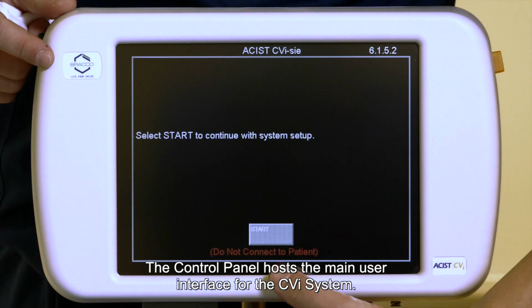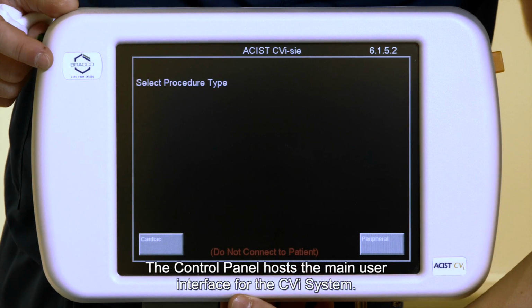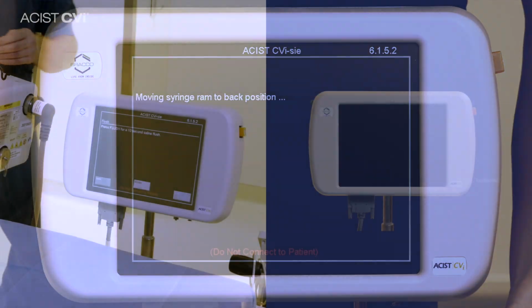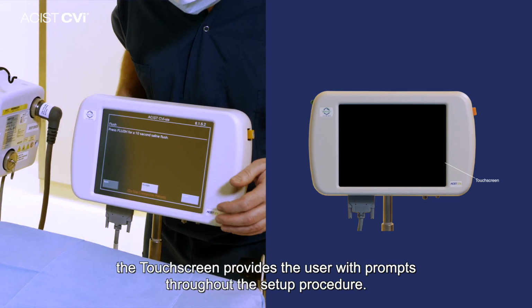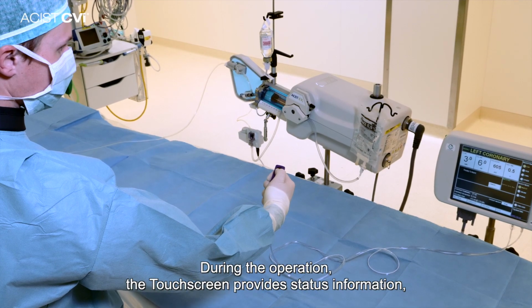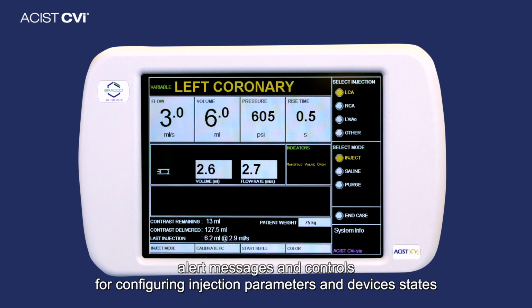The control panel hosts a main user interface for the CVi system. The main features of the control panel are as follows. The touchscreen provides the user with prompts throughout the setup procedure. During the operation, the touchscreen provides status information, alert messages, and controls for configuring injection parameters and device states.